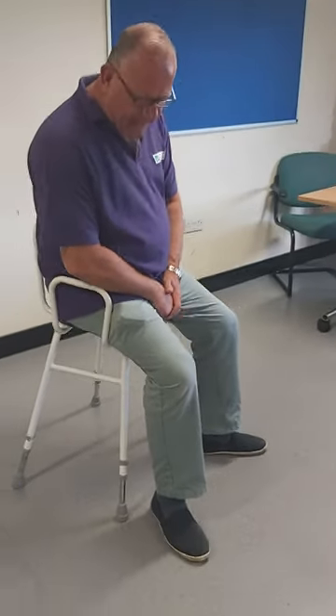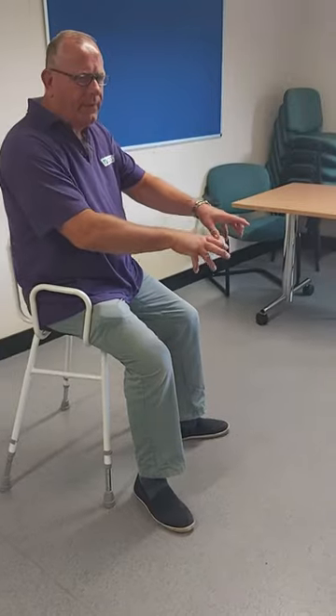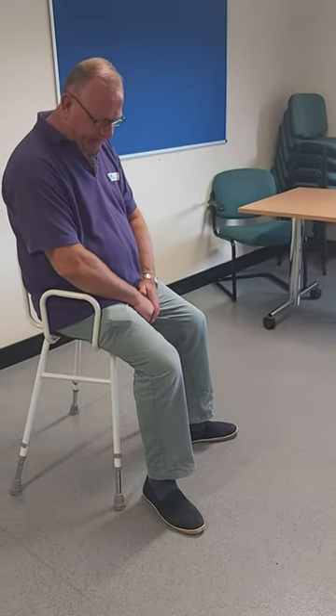So with your perch installed, you've got to make sure that your feet are flat on the floor when you're using it. This is really important because you don't want to be slipping off. You've also got to make sure it's at the right height so people can carry out their daily tasks or activity that they need to.